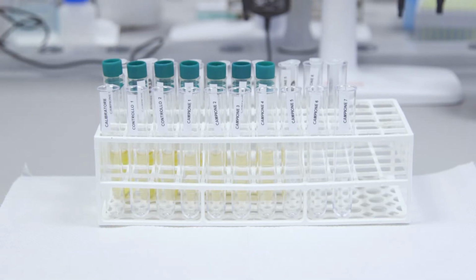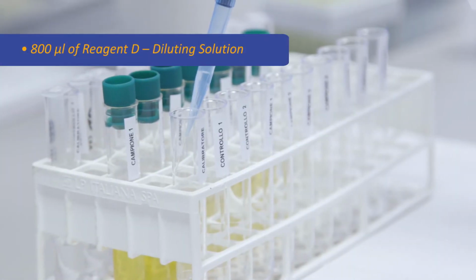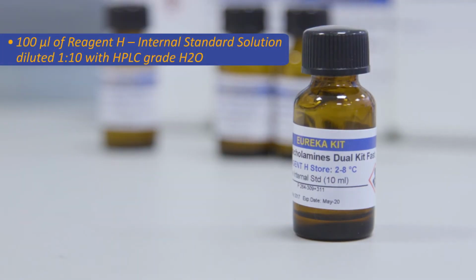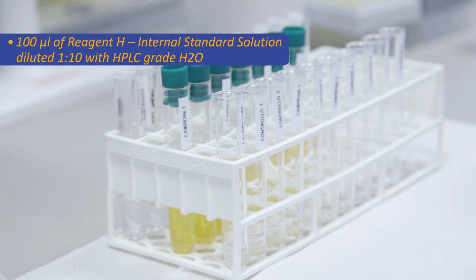Now that we've completed the plasmatic catecholamines, we are going to present the analytical procedure for the urinary catecholamines. We prepare as many tubes as there are samples, including the calibration standard and controls. Now we dispense in sequence in all the tubes 800 microliters of reagent D diluting solution, 100 microliters of calibrator, samples and controls, 100 microliters of reagent H, internal standard solution, diluted 1 in 10 with HPLC grade H2O.